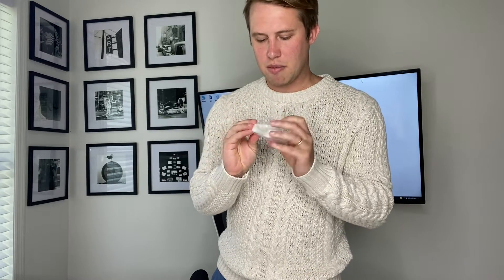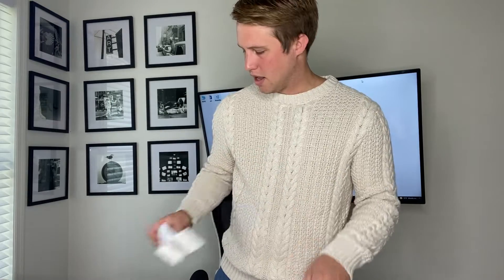What I really like about Medit and the models they send you is that it has a QR code on it, so you can scan that and go through some practice videos before scanning intraorally. We also have a USB-C cable here.